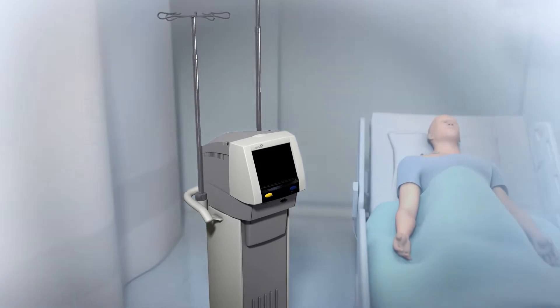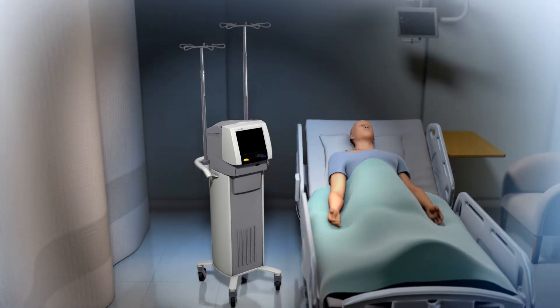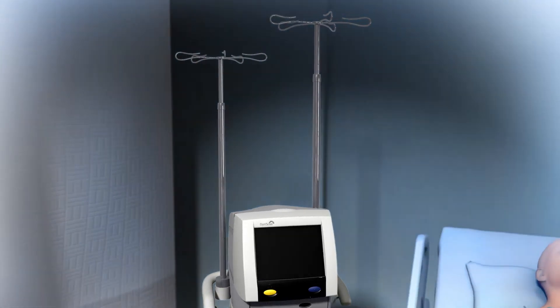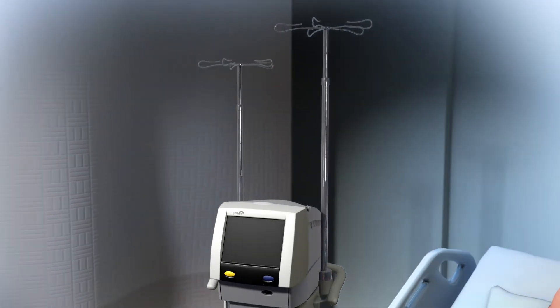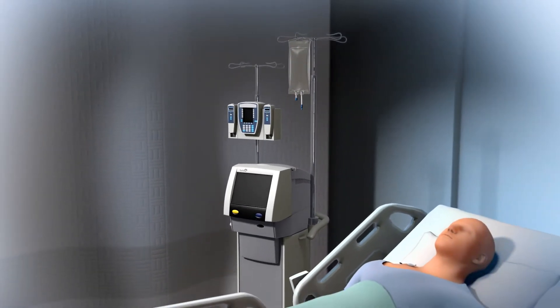The OptiScanner is installed on a cart, which may be placed at the bedside location of choice. Its space-neutral design includes two poles to accommodate other devices, such as IV pumps, saving valuable space around the patient's bed.